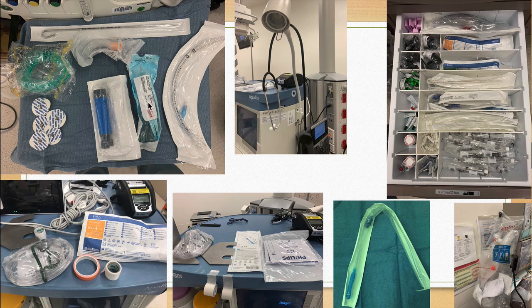You have a handle, you have a blade. Here I'm just emphasizing the need to know where a stethoscope is, even though this is one of those cheapio disposable ones. Here's your ambu bag, esophageal temp probe for what that looks like. Again, can be found here along with your backup airway with respect to an LMA.